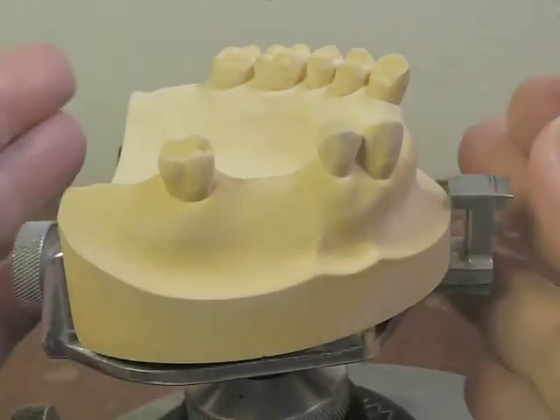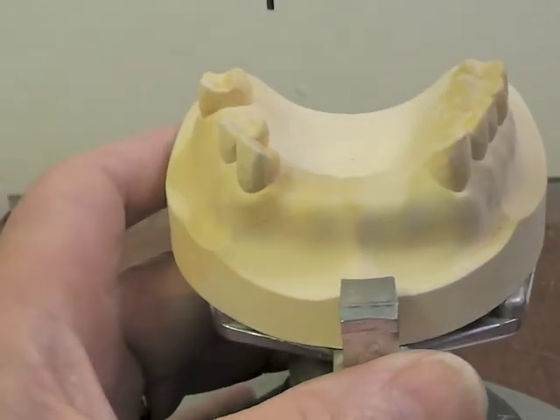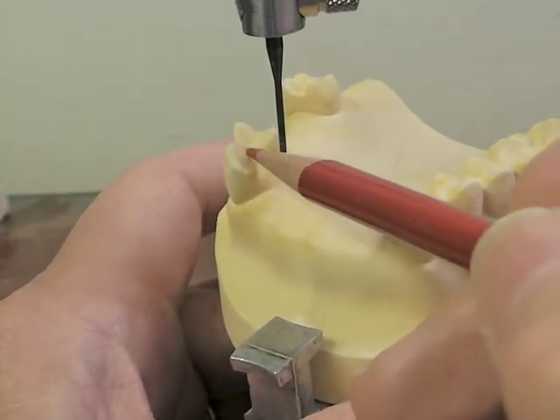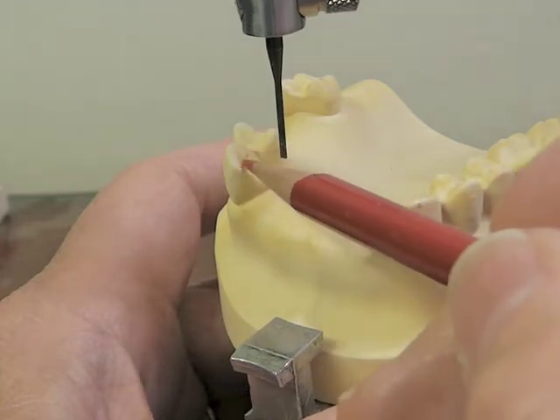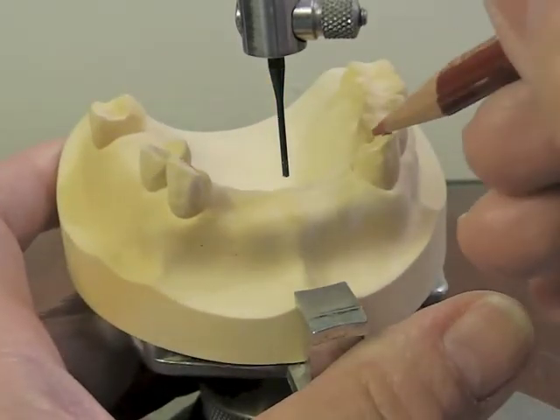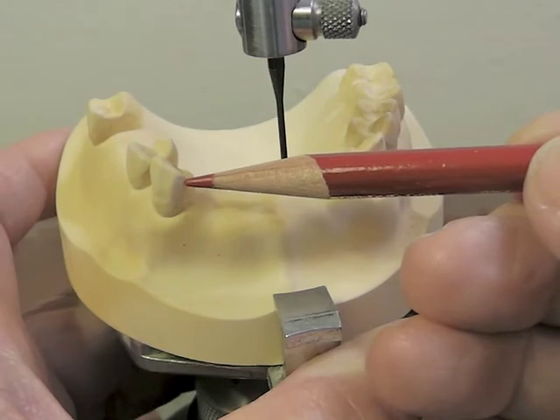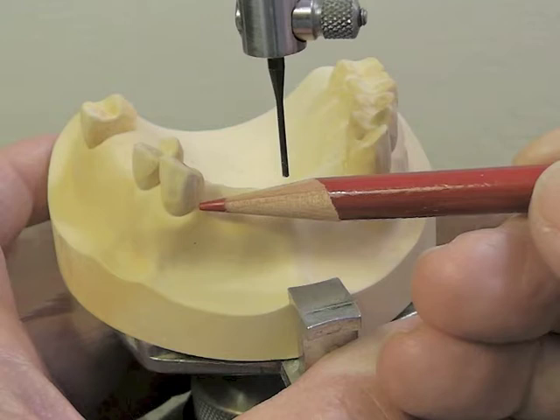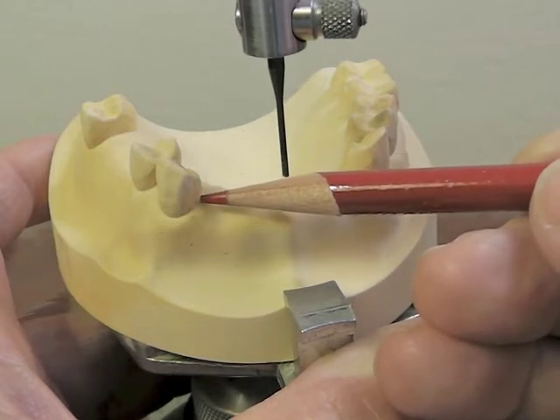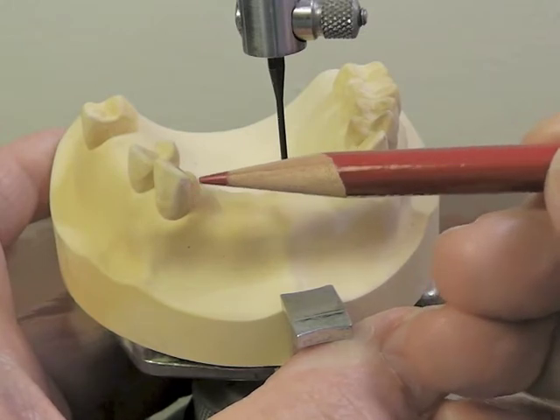After you get that taken care of, you don't want to change the anterior-posterior relationship of the cast, but we have to look at the guide planes in our anterior area. The guide plane on a maxillary canine will come no farther forward than the cusp tip. We do not want to bring our guide plate all the way to the facial surface, or what you would have would be a sliver of metal, and the denture tooth would butt up against that sliver — and from the front, you would see a silver line on this patient. So we keep the guide plate back so that we can butt the denture tooth right up against this tooth, and we'll see tooth, tooth, and no sliver of metal.